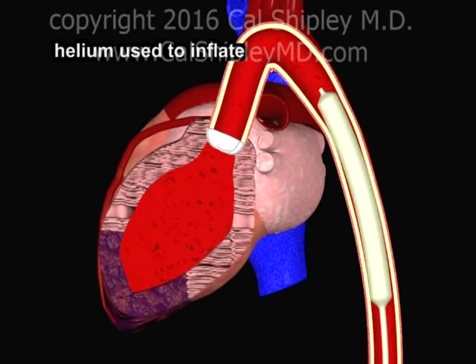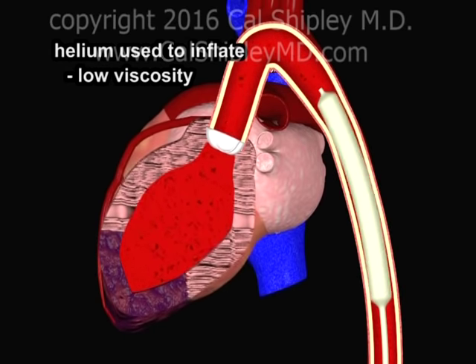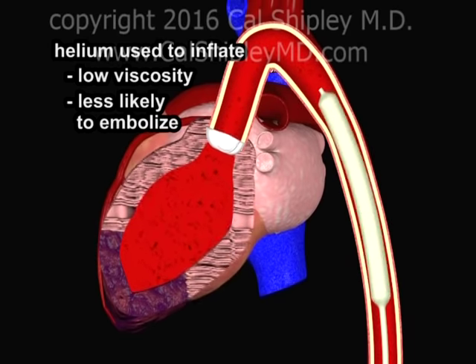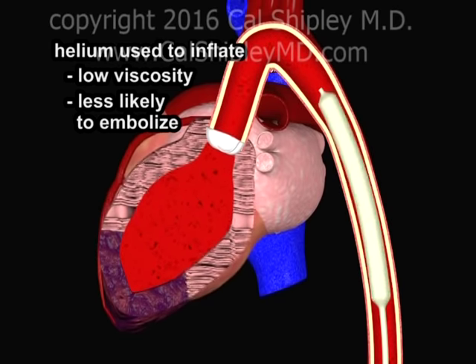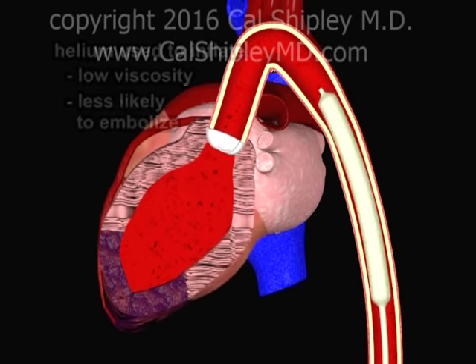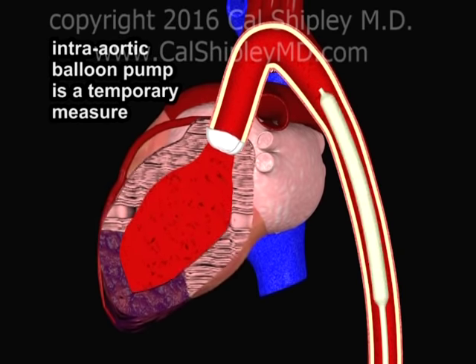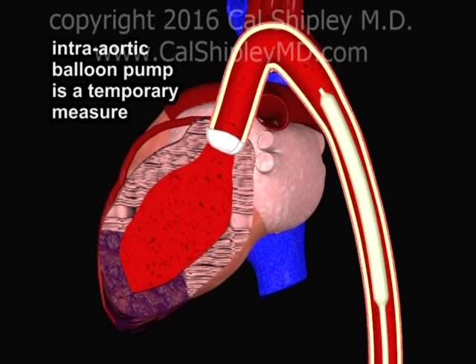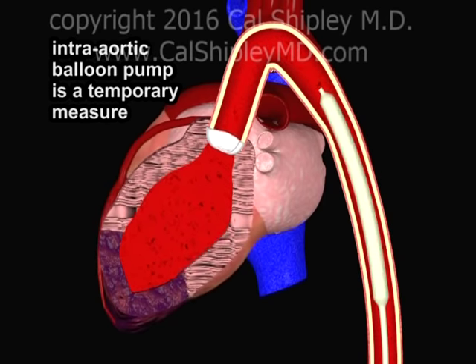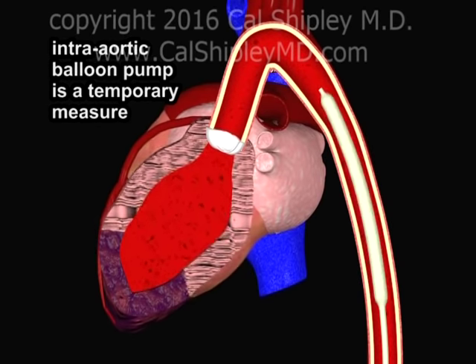Helium gas is used for inflation as it has a low viscosity and moves rapidly through the extended tubing attached to the balloon. It is also less likely than air to embolize should the balloon rupture. It's important to note that the intra-aortic balloon pump is a temporary measure. It may be left in place for up to several days until other treatments have been utilized to improve the patient's cardiac condition.